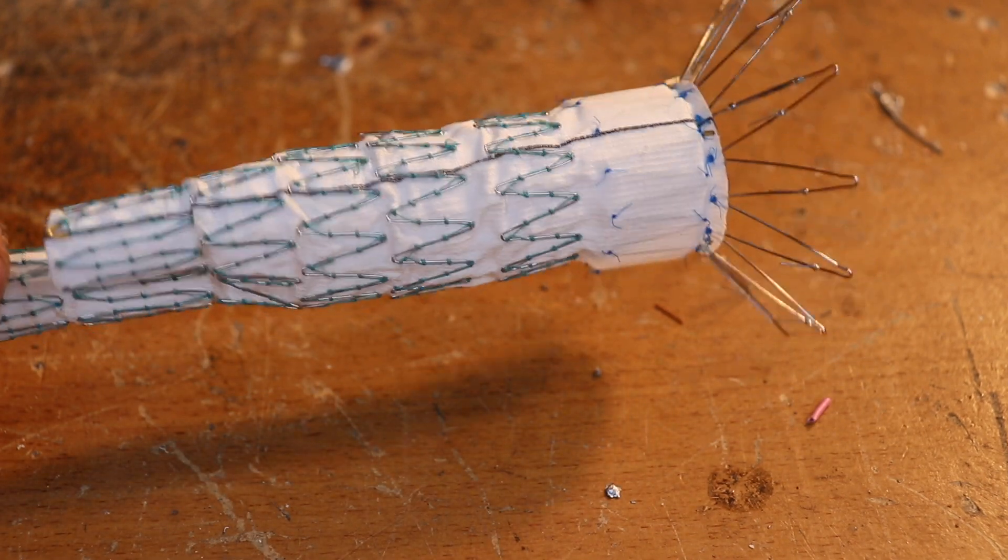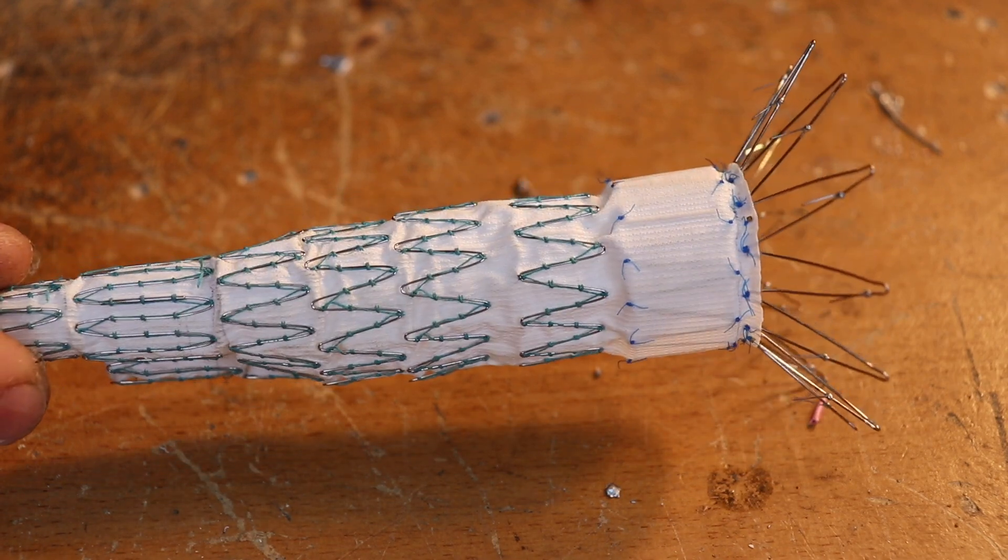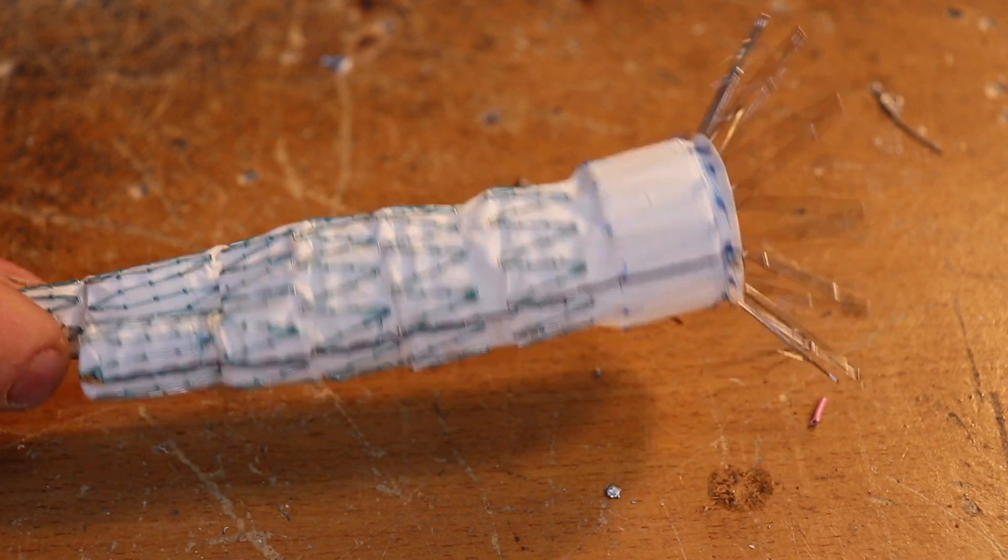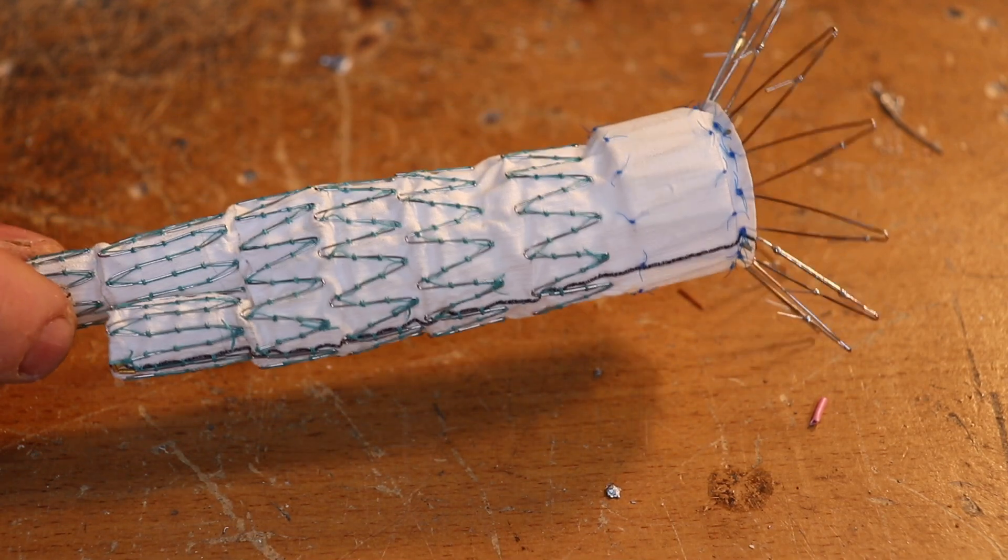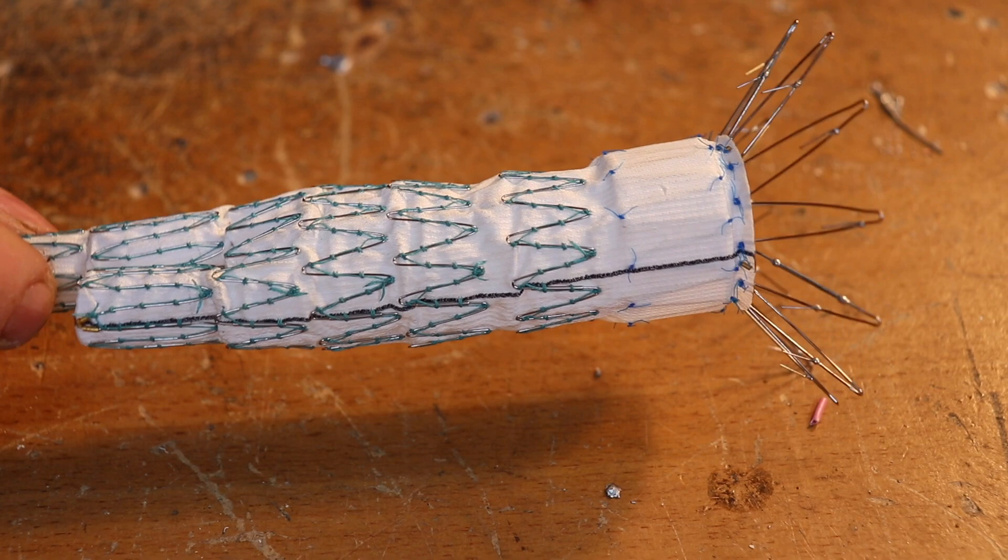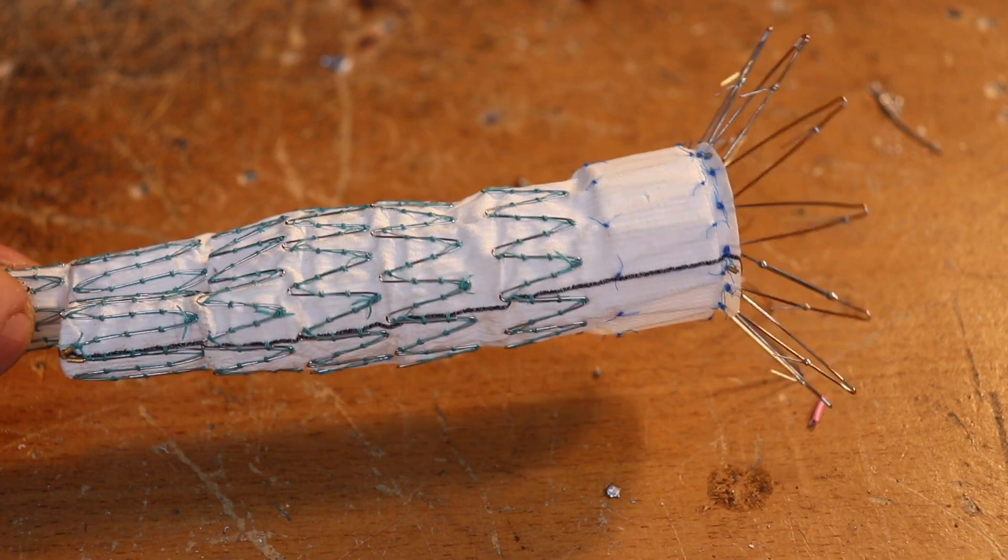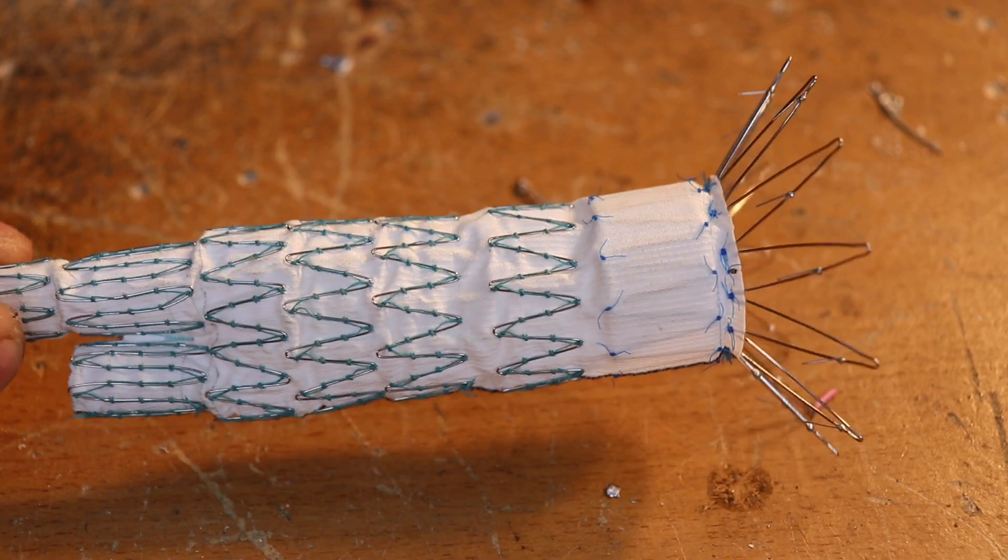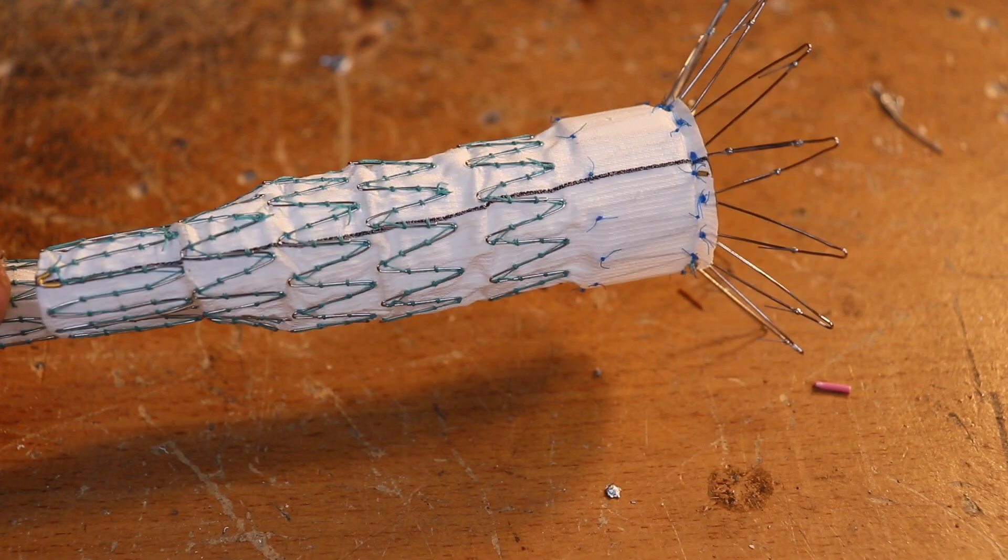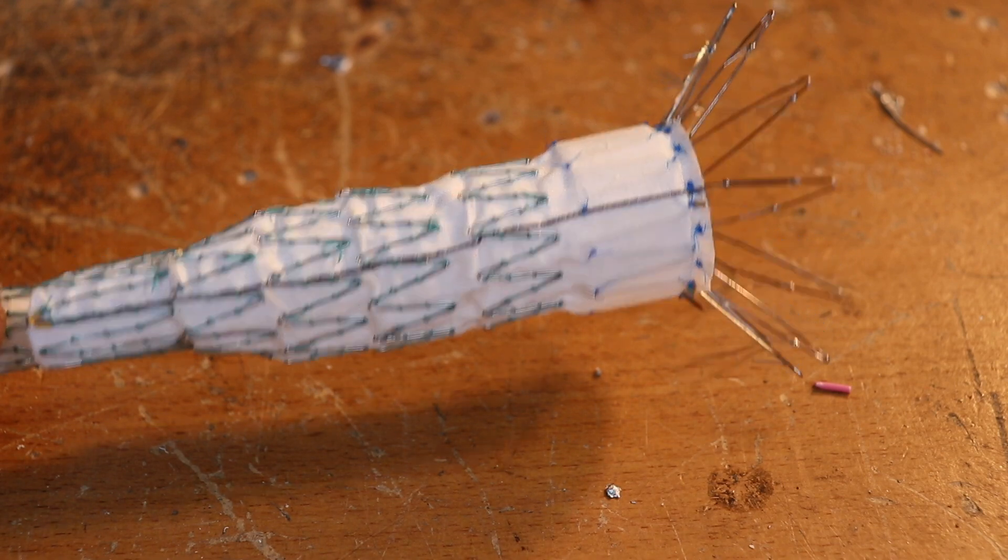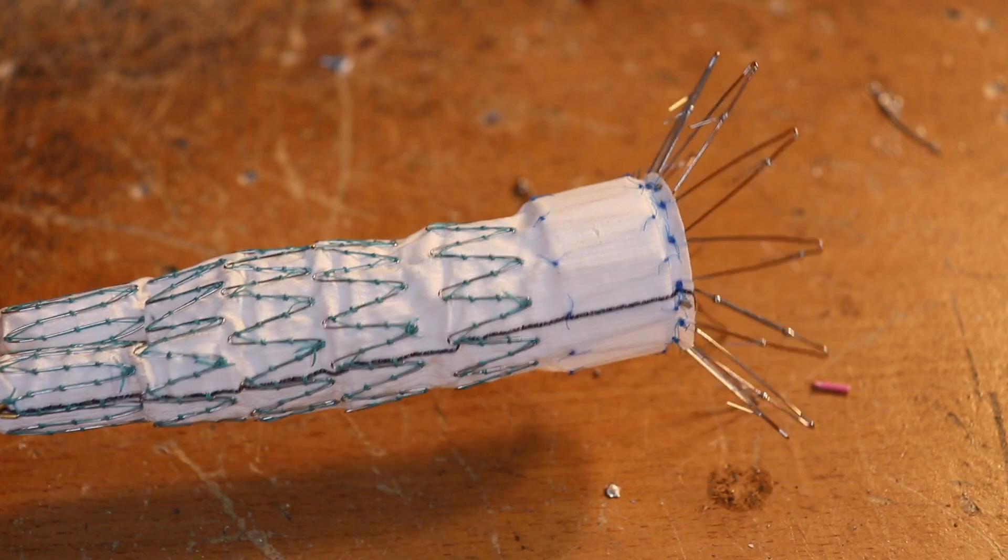In my day job when I'm not fixing engines or building electronics, I work as a vascular surgeon, so I thought I would share with you some of the tech that we use to repair blood vessels. It's a bit like plumbing in human beings. I'm going to go through some of the tricks of the trade and the bits and pieces we use.